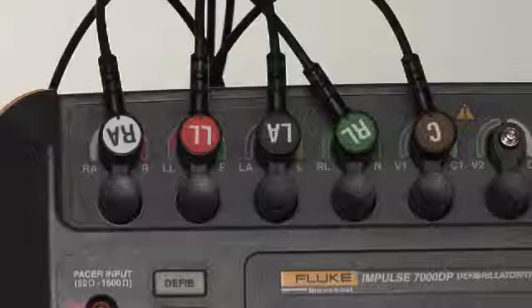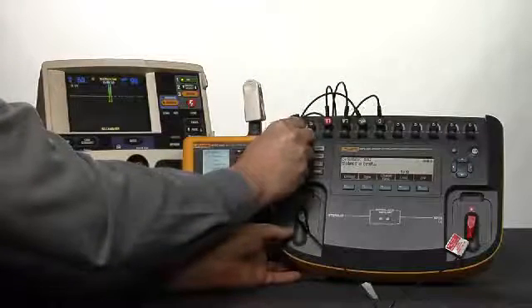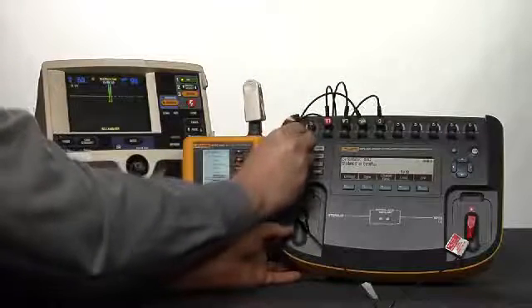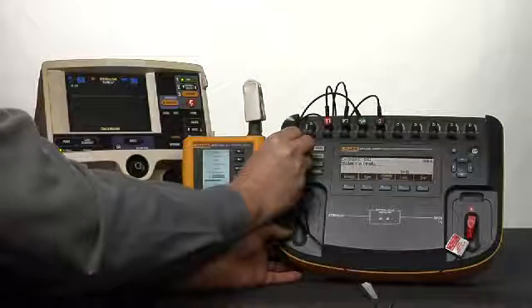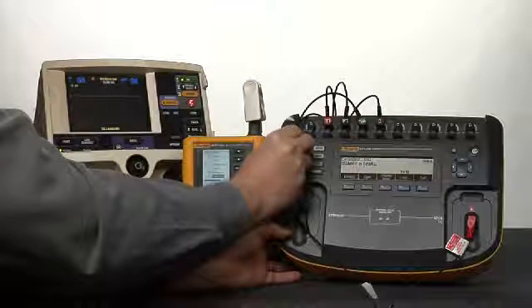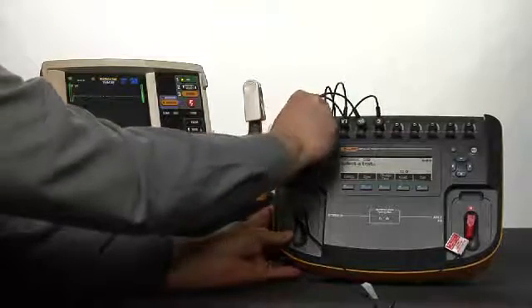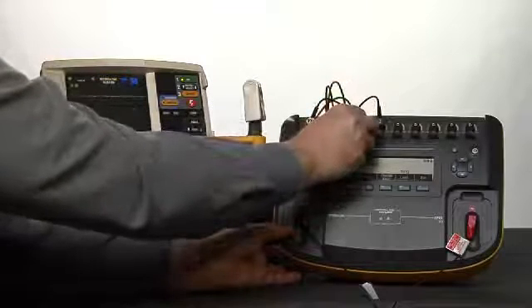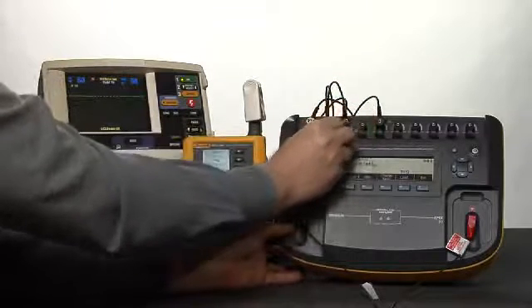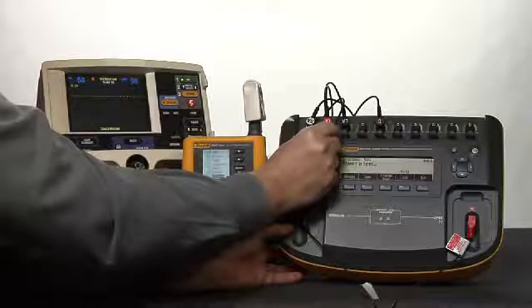Remove the right arm lead from the Impulse 7000. Right arm lead removed. Verify that the device under test displays a right arm lead off screen message. Right arm lead off screen message displayed. You can reconnect the right arm lead and remove the right leg lead from the Impulse 7000. Removing right leg lead. Verify that the device under test displays an ECG leads off screen message.